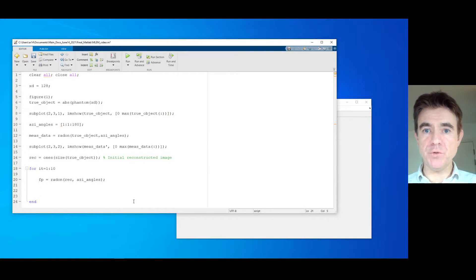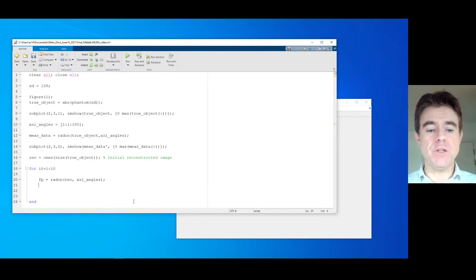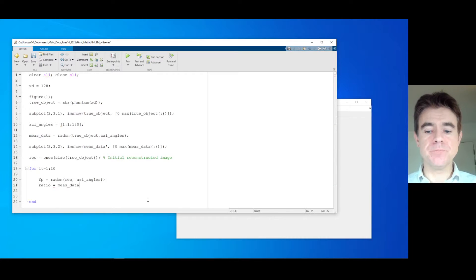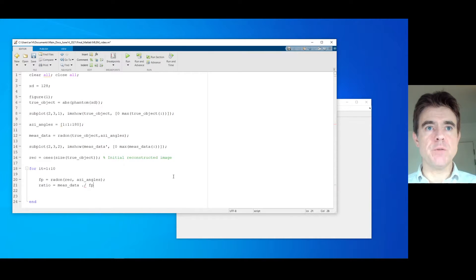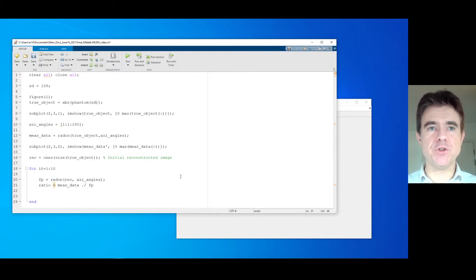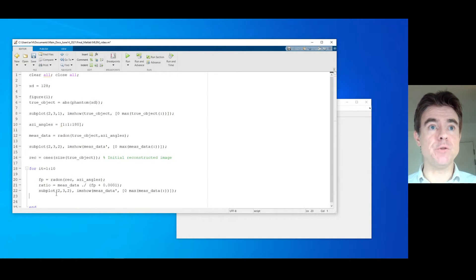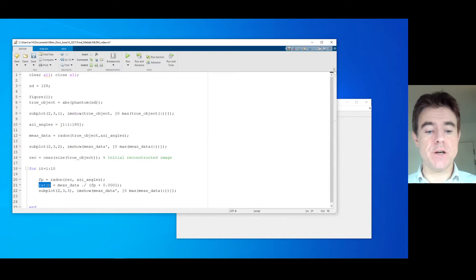The algorithm is an iterative approach where we look at the ratio between the measured data and the forward projection — an element-by-element division. We should be careful about division by zeros, so I'm just going to add a small safety offset to avoid that. That gives us a ratio sinogram. What we might want to do already in this iterative loop is take a look at that ratio to make sure it's what we'd expect.